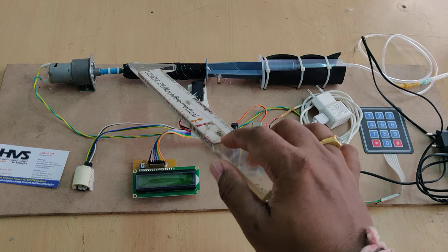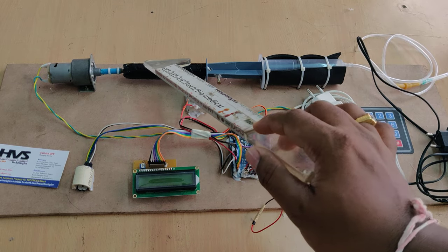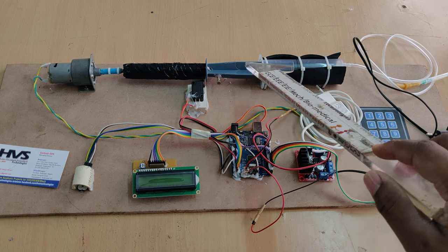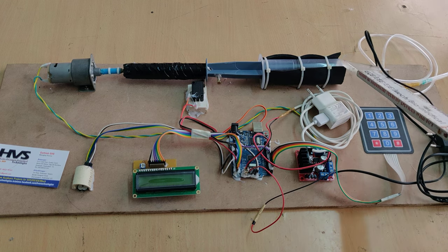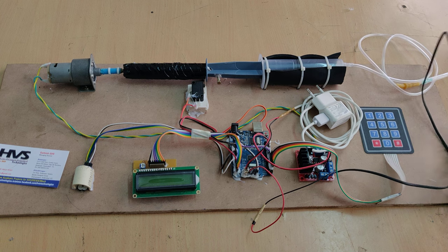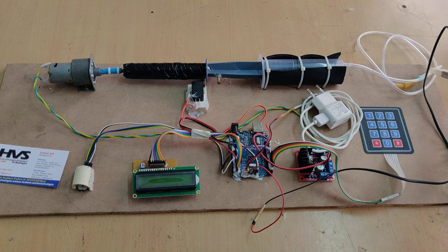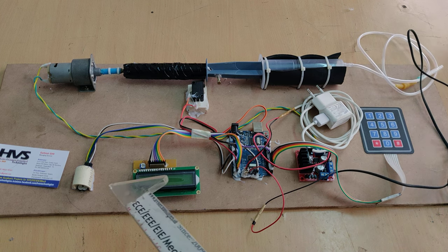Using a threaded screw mechanism, the syringe moves inward, and automatically the liquid inside the syringe is ejected into the patient's body.